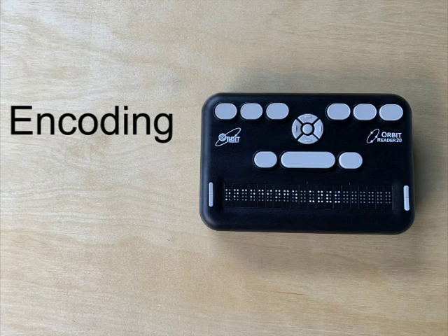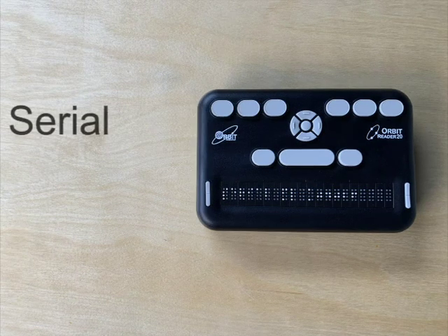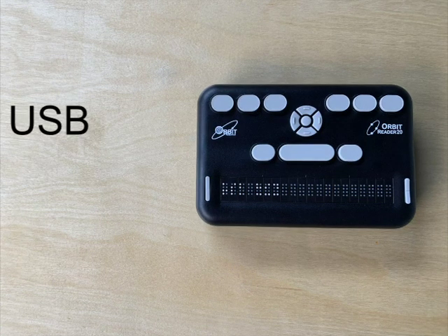Encoding. This lets you encode text files to various formats. Version. This displays the version of the software running on your device. Serial. This displays the serial number of your device. Reset defaults. This resets all of your settings to factory settings. USB. This lets you select between 3 possible USB protocols.